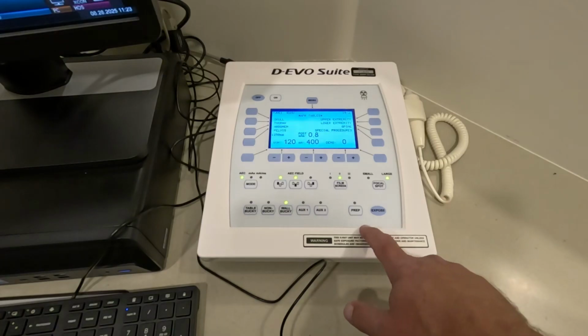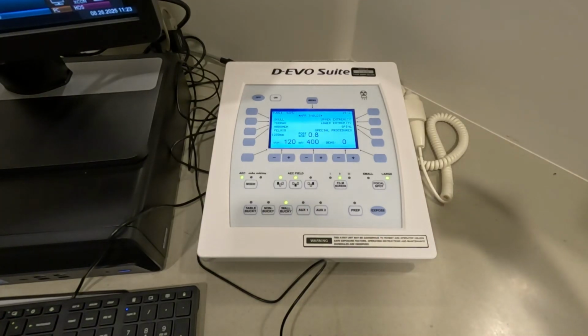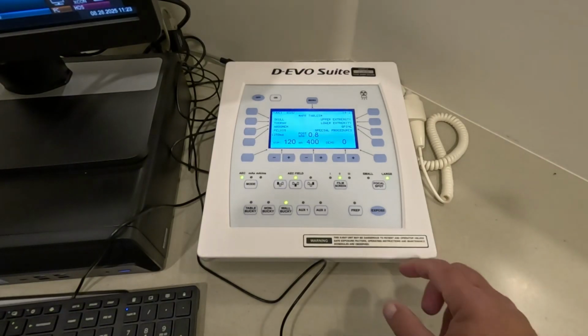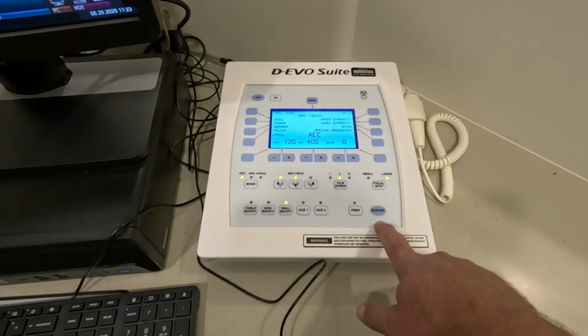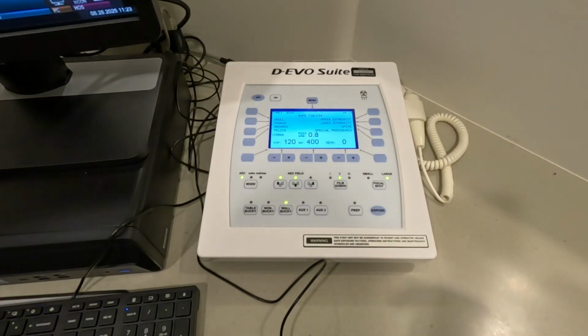The reason for that is that, to protect the x-ray tube from excessive exposure and heat, the rotor has to spin up, and it goes from 0 to 3,000 RPMs in about a second. So if you listen as I push the prep button all by itself, about a second delay. I get off of that and push just the exposure again, and it took about a second before we made the exposure.